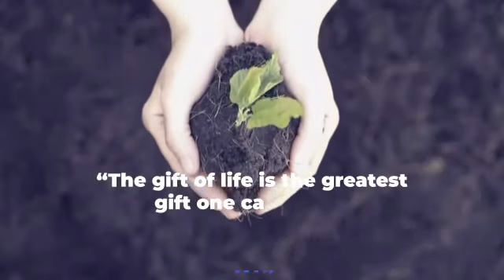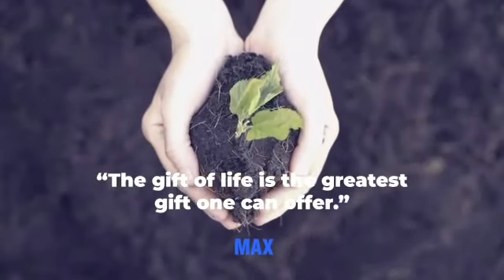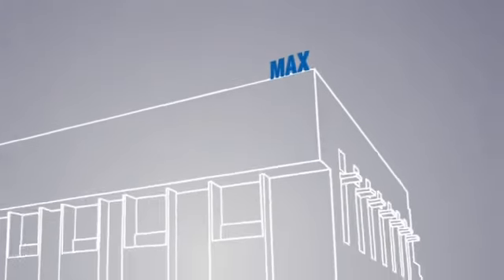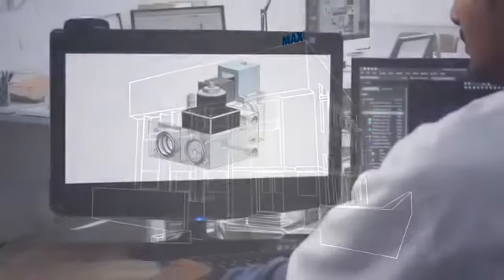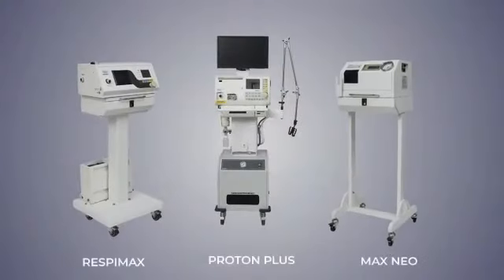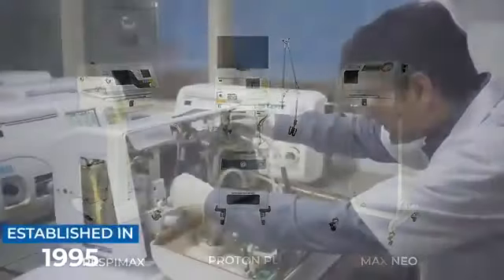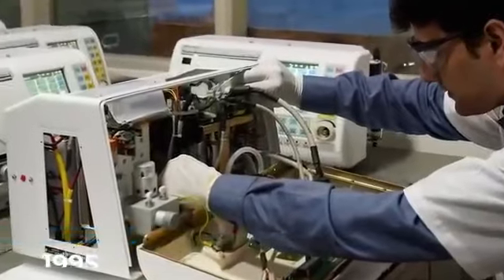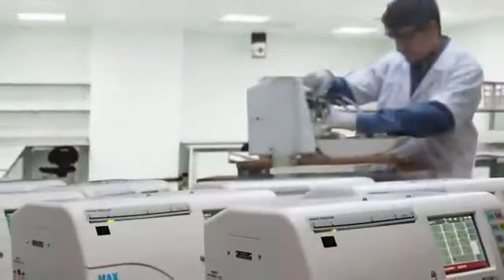The gift of life is the greatest gift one can offer. With this as the underlying philosophy, Max Ventilators has pioneered the healthcare space with its widest range of product offerings. Established in 1995, Max Ventilators has grown strength to strength over the span of 24 years.